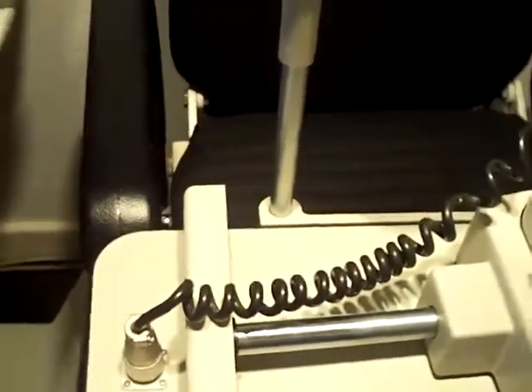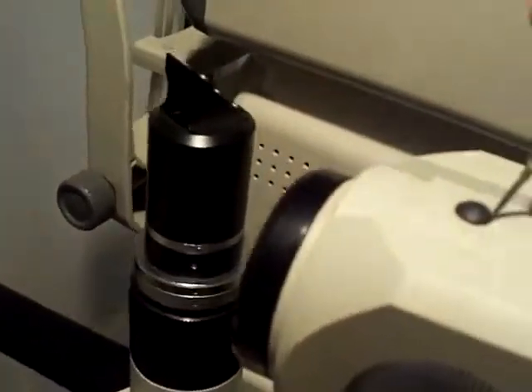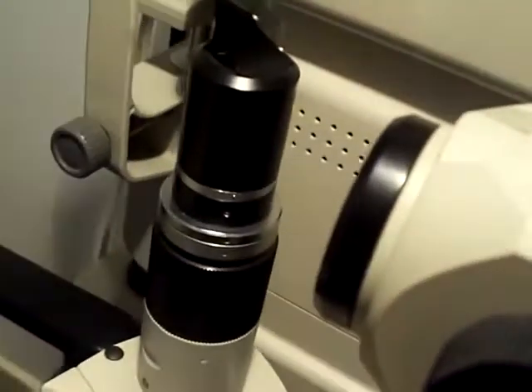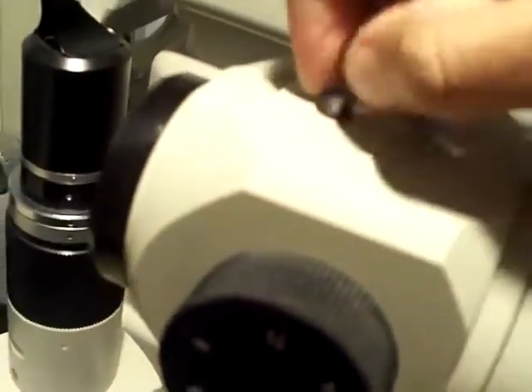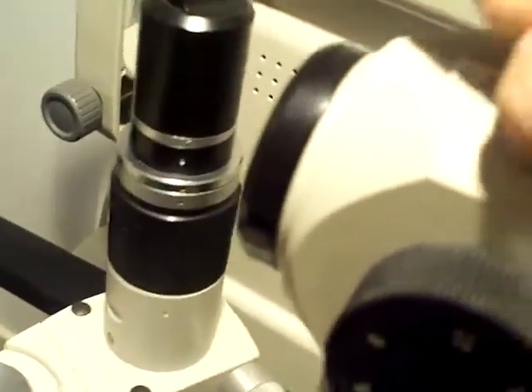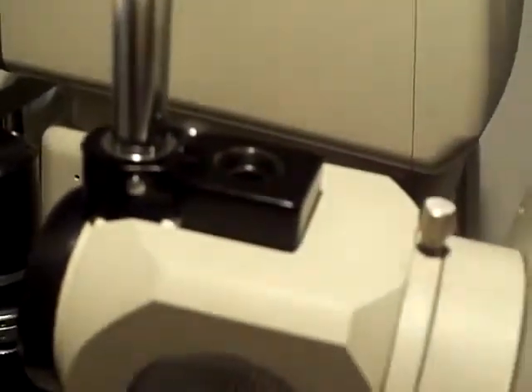It's quite simple. If you look at the eyepiece you will see a little plug — simply take this off. If you're lucky you will not have to do that because sometimes the hole is already there, bare. What you do now is place your mount on top of the eyepiece.